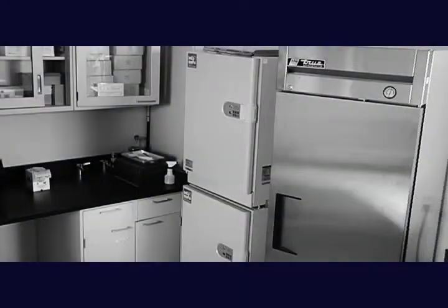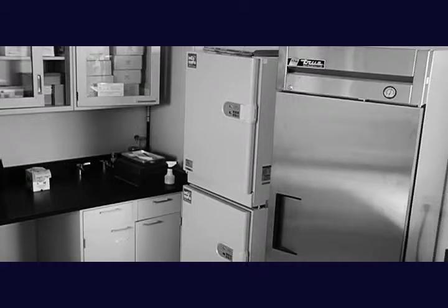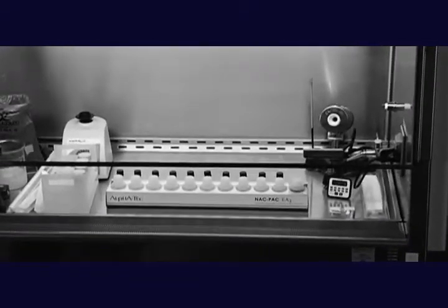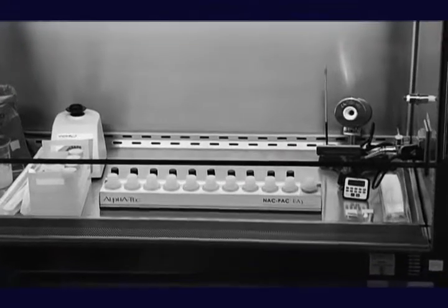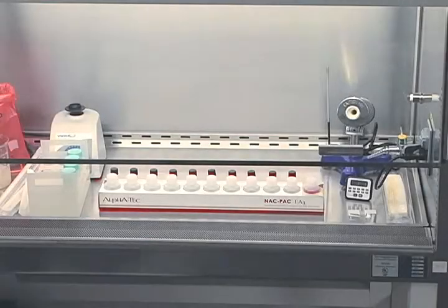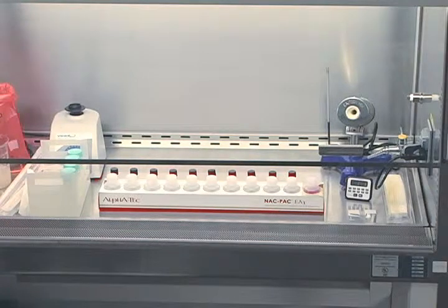AlphaTec Systems recognized these problems with traditional specimen preparation methodologies and developed a complete set of reagents that overcome them. Using the procedure shown in this presentation with the reagents provided by the NACPAC EA3, your laboratory can maximize mycobacteria recovery, remove the risk of cross-contamination, and generate reproducible sample characteristics time after time. This will result in the most sensitive pre-clinical specimen preparation for mycobacteria available.